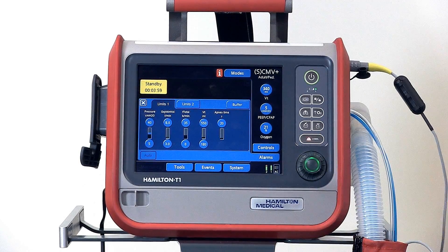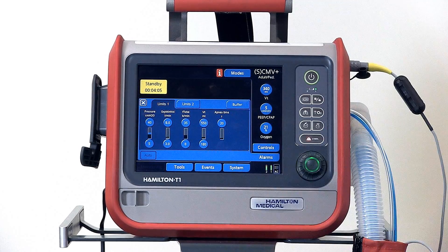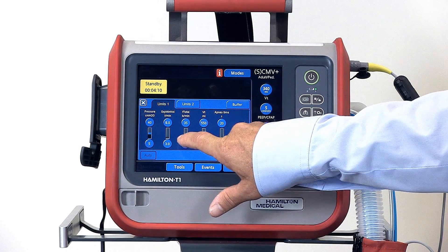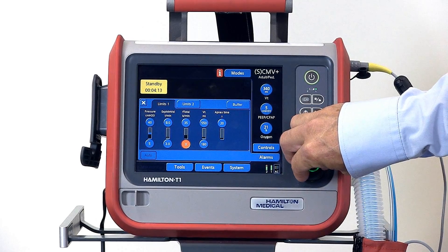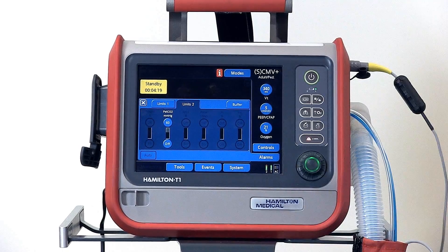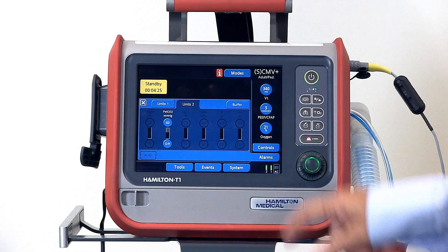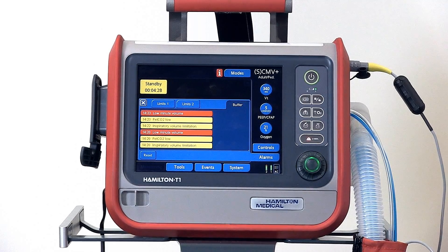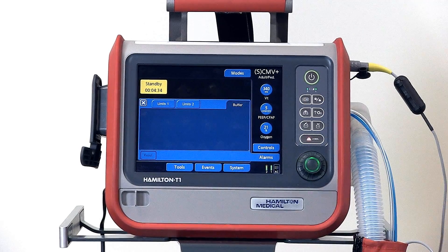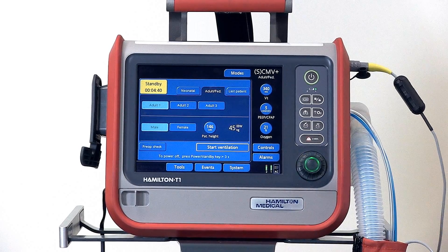Before ventilation, you might want to adjust the alarms, so touch the alarms tab to open the alarms window. Across the top you'll see the upper alarm limits, and across the bottom the lower alarm limits. To adjust a limit, select the one you'd like to change and confirm. There's also a limits two window where you'll find other alarms such as your end-tidal CO2 alarm. There's also a buffer screen where you can view your most recent alarm occurrences, and once you've viewed those, you can hit reset to clear the buffer window. Then just close the alarms tab.